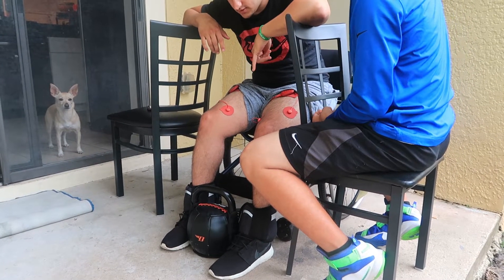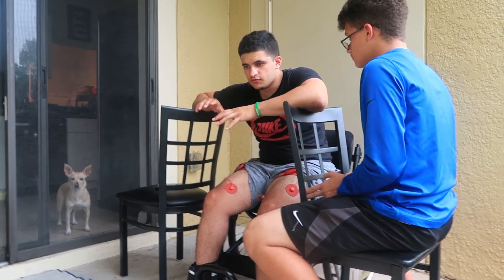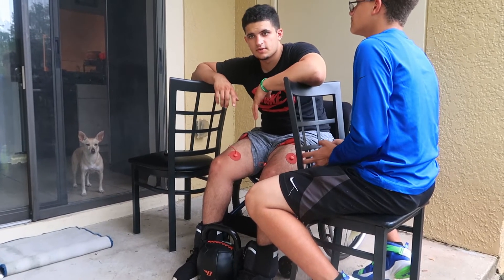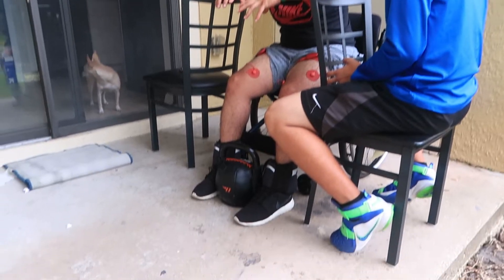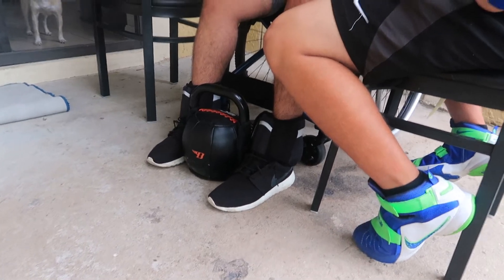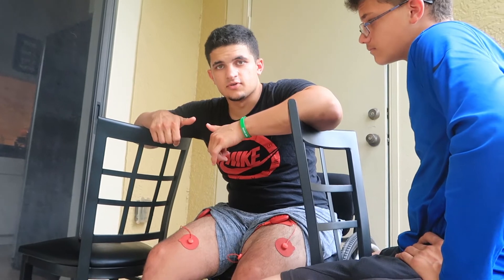The reason I have weights on my legs — the ankle weights and stuff — is to keep my legs from going too far forward when I stand up, so my feet don't come off the ground and get misplaced. That keeps them in one spot. The kettlebell is to keep my legs from coming together, to keep them spaced out in the same spot throughout the whole entire time.